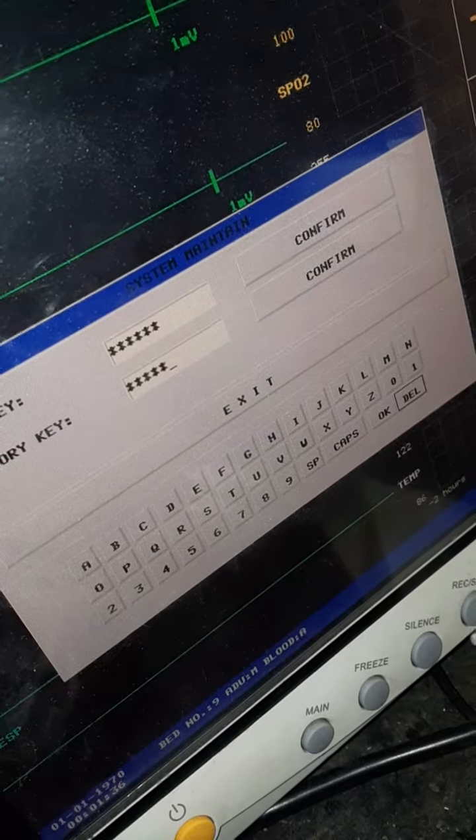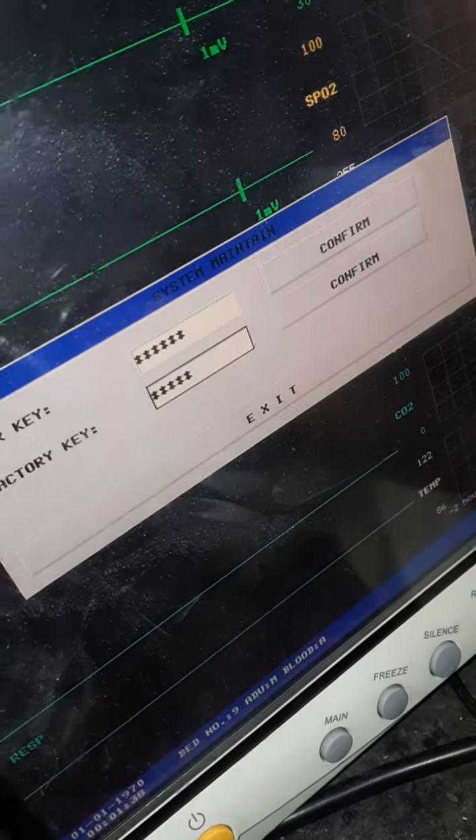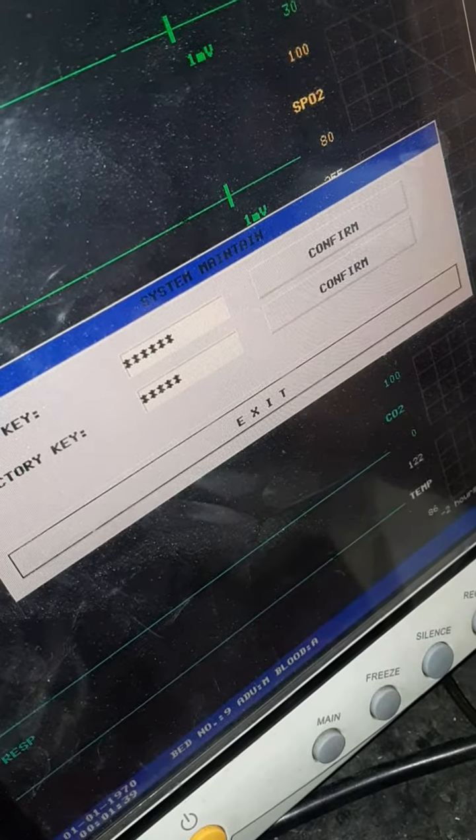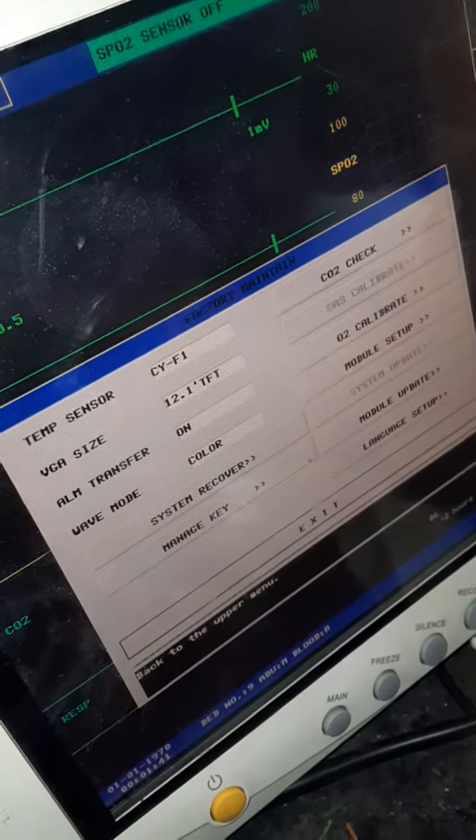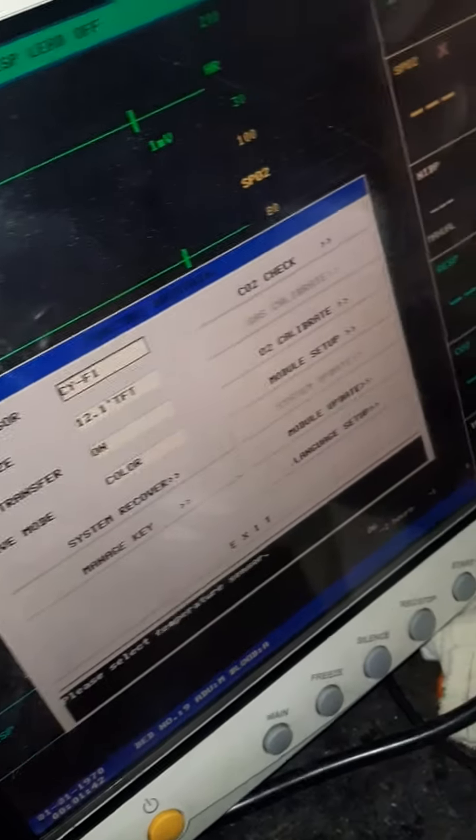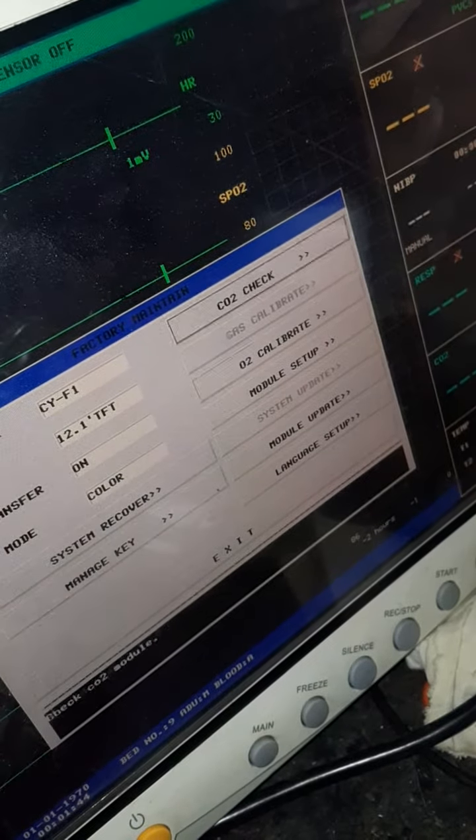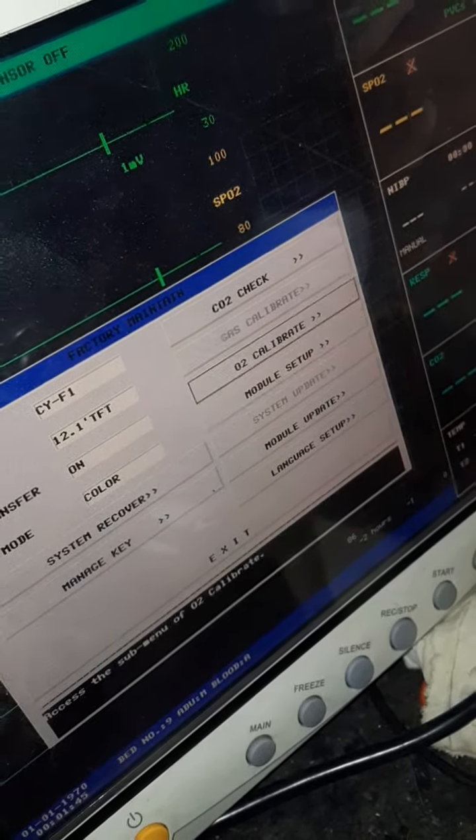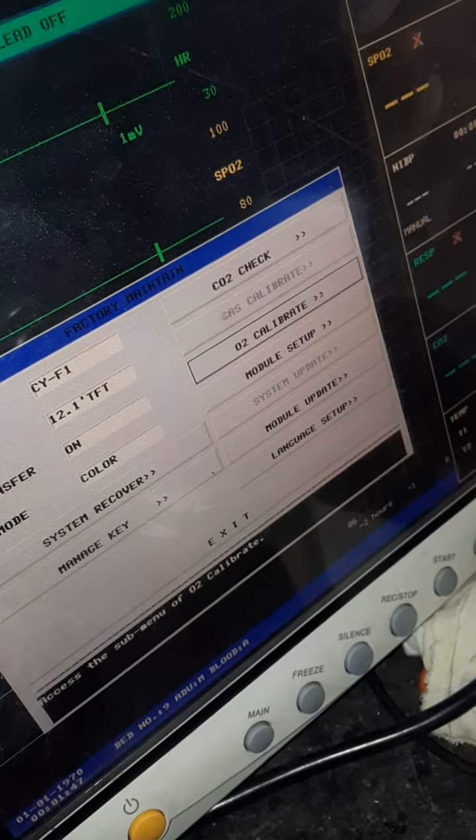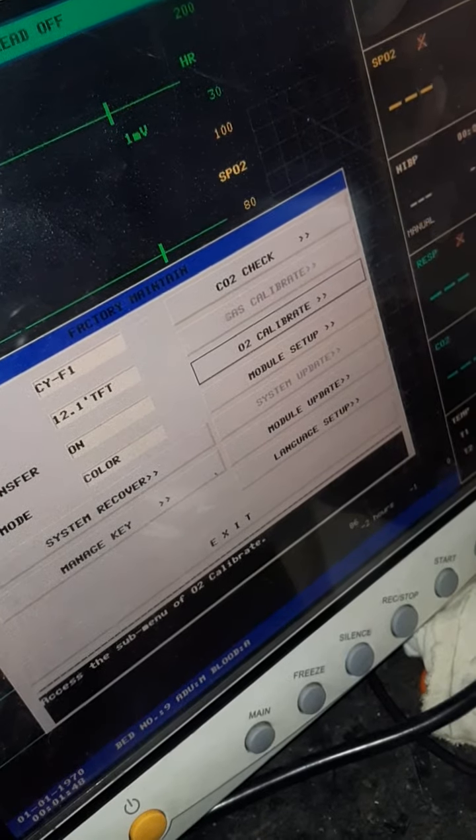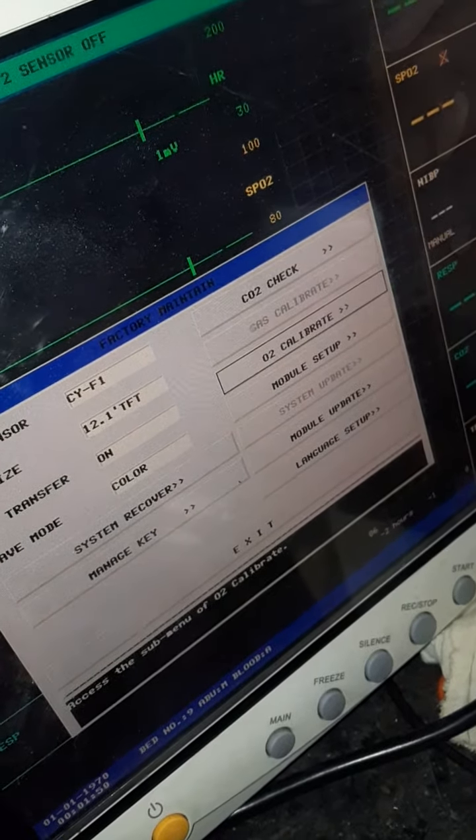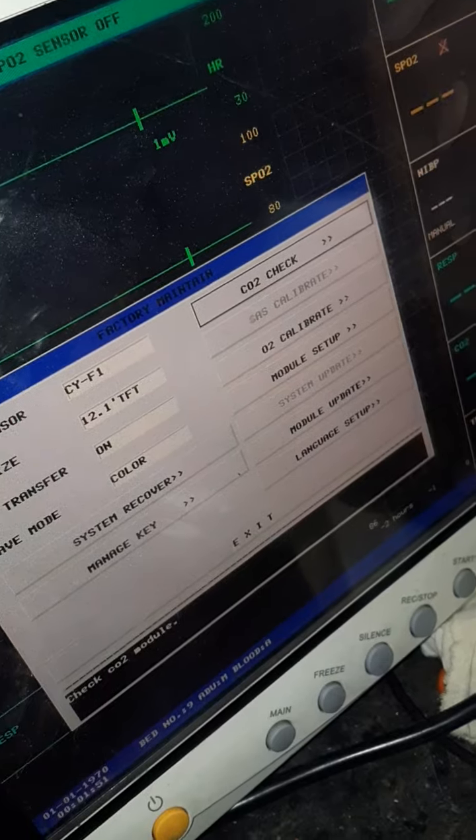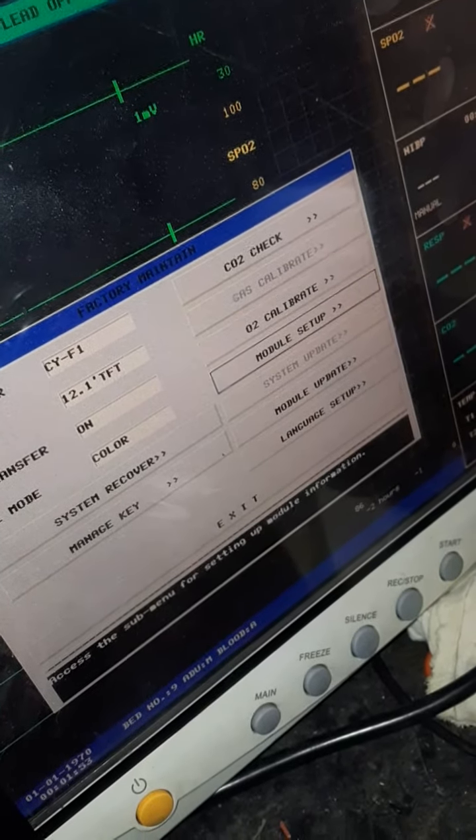After pressing eight five times, confirm and you'll go to the new menu. In this menu there are a lot of options - oxygen calibration is available in this module. If your oxygen is not giving the correct value you can go here, or carbon dioxide checking for module checking.